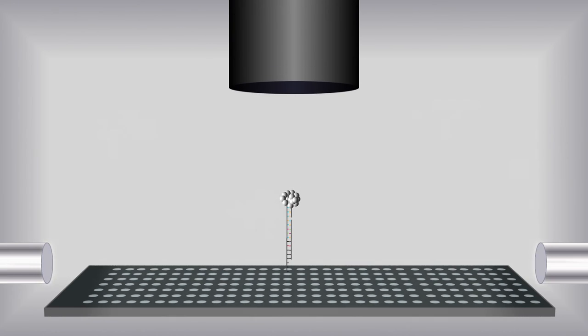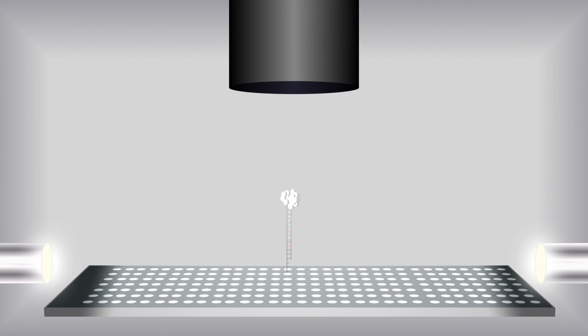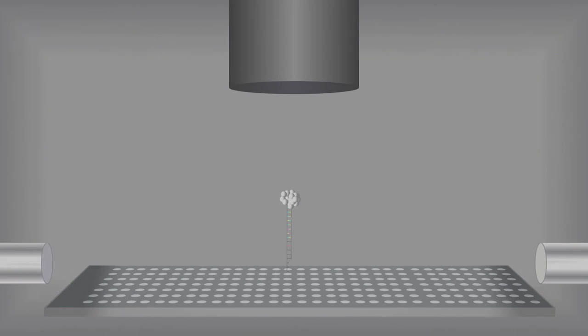LED lights shine across the surface of the slide, and a camera within the Luminex instrument takes an image of the slide at multiple exposures. The silver coating scatters light back to the camera, creating a visible spot on the slide if the target nucleic acid was present in the sample.